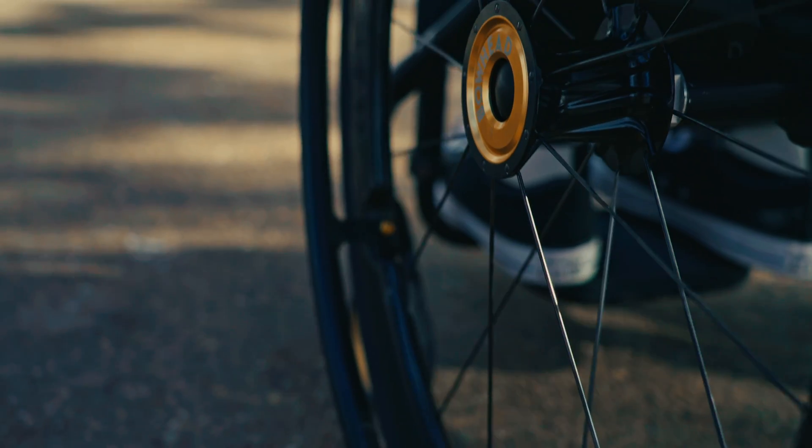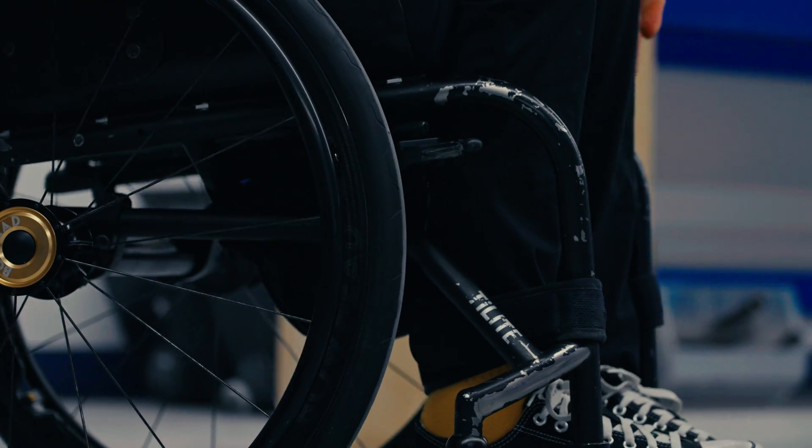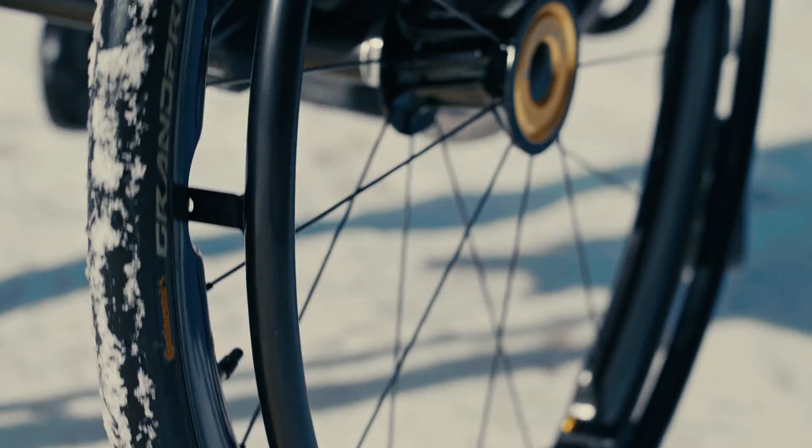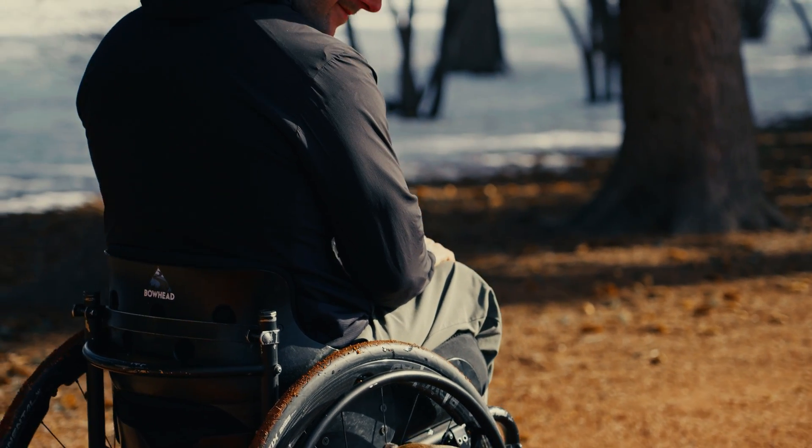This compound is produced by refining special synthetic rubbers with proven natural rubber to create a high-performance tread mixture. With the addition of their Poly-X Breaker, these tyres are not only resistant to foreign bodies, but especially to punctures.